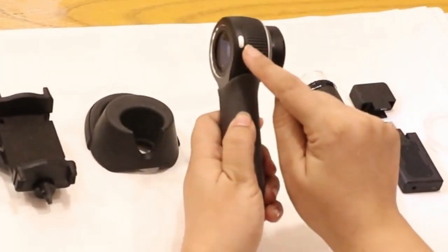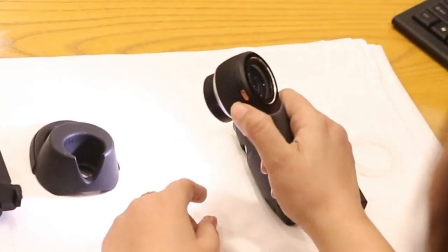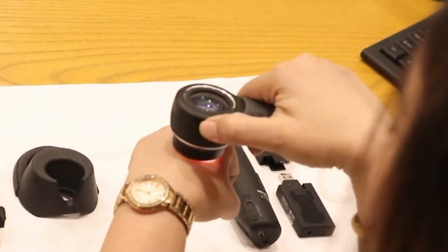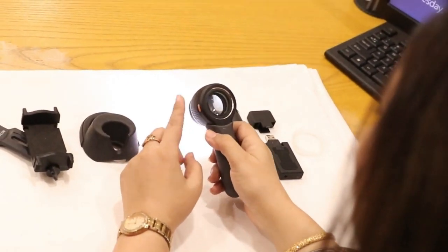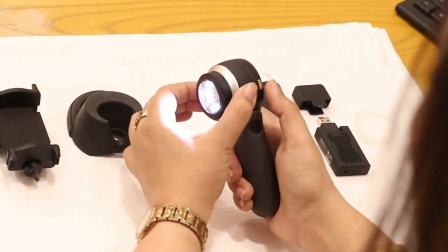This button is on the right side of the scope. There is another button which is bronze colored on the left side, and this makes it possible to accentuate the pigment. Once we see something on the skin, if we press this button the pigment kind of accentuates and makes us able to see the details. So this is about the buttons of the dermoscopy.